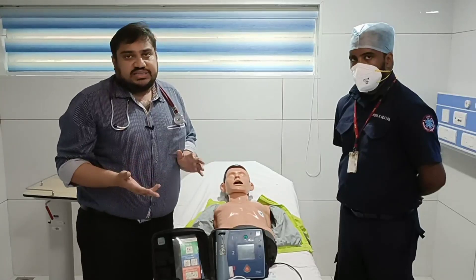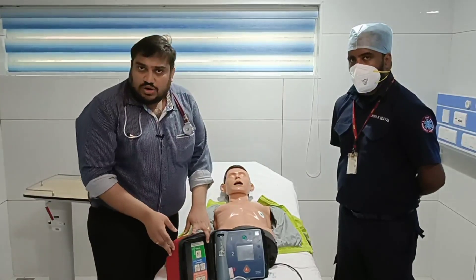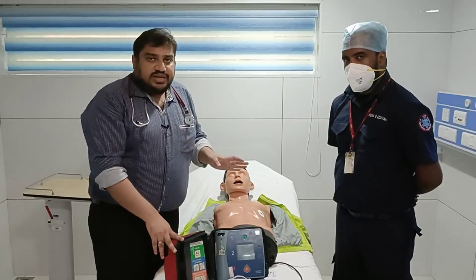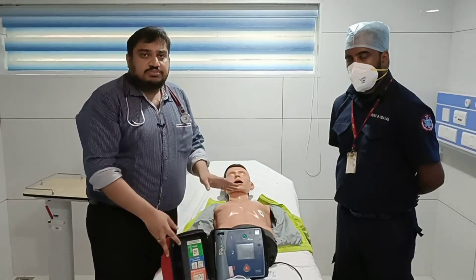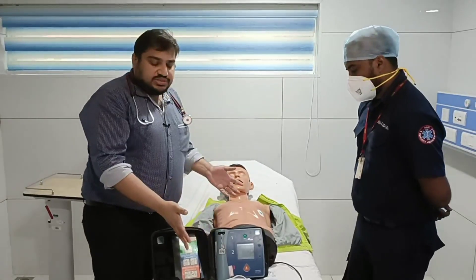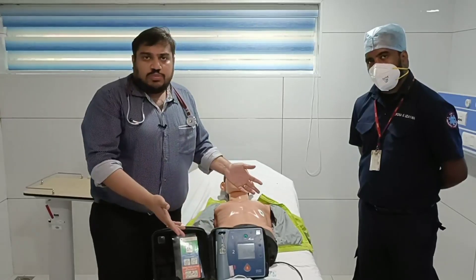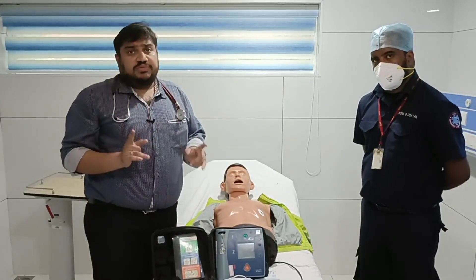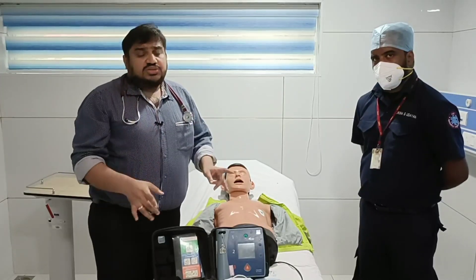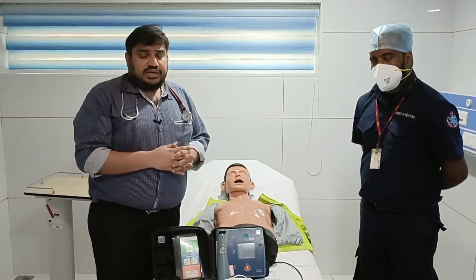The AED is not meant for medical people — it is basically meant for a lay person who doesn't know anything. It's pretty simple: take it out, switch on the machine, listen to the instructions, apply paddles. If it is a shockable rhythm, the one point you need to be careful about is that no one else should be touching the patient. That part requires training. That is regarding your use of the AED — thank you.